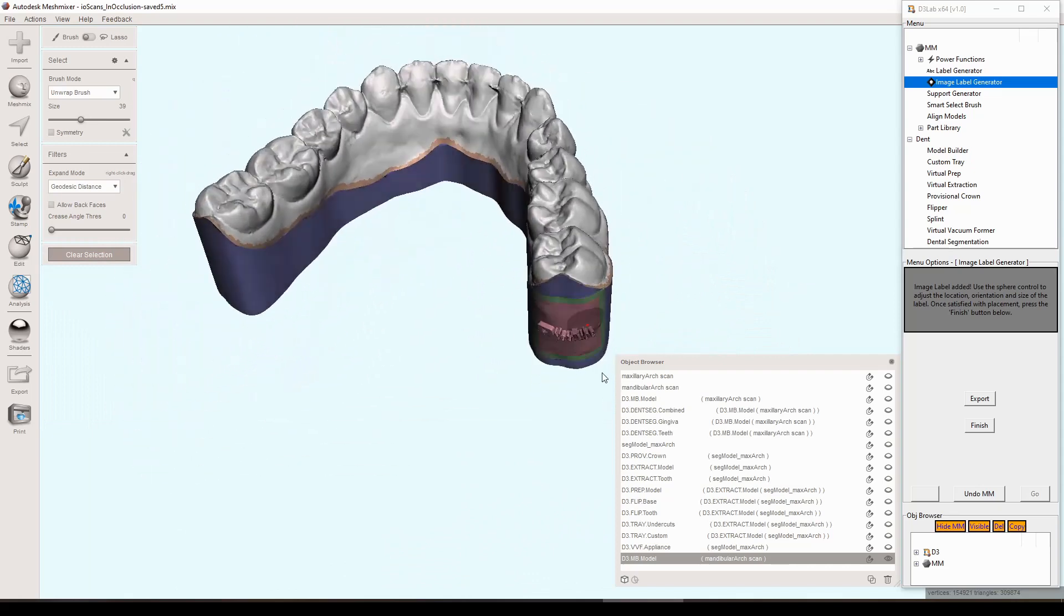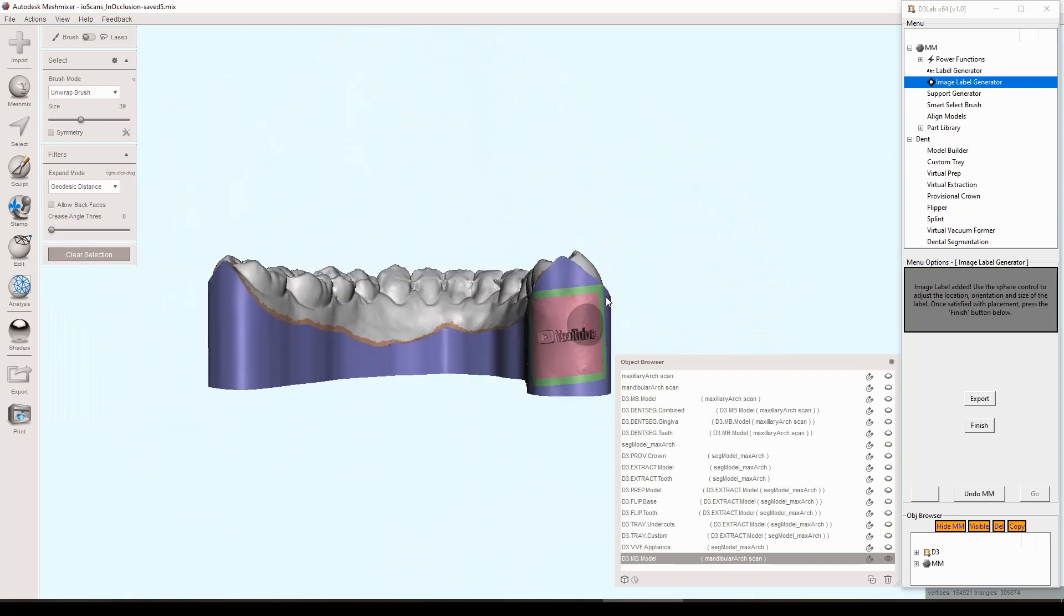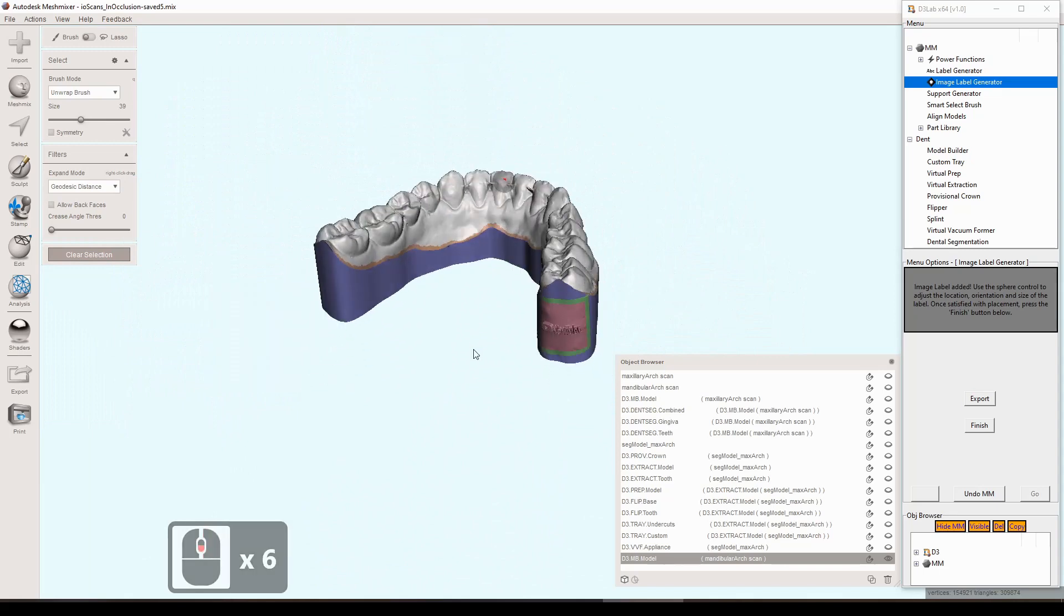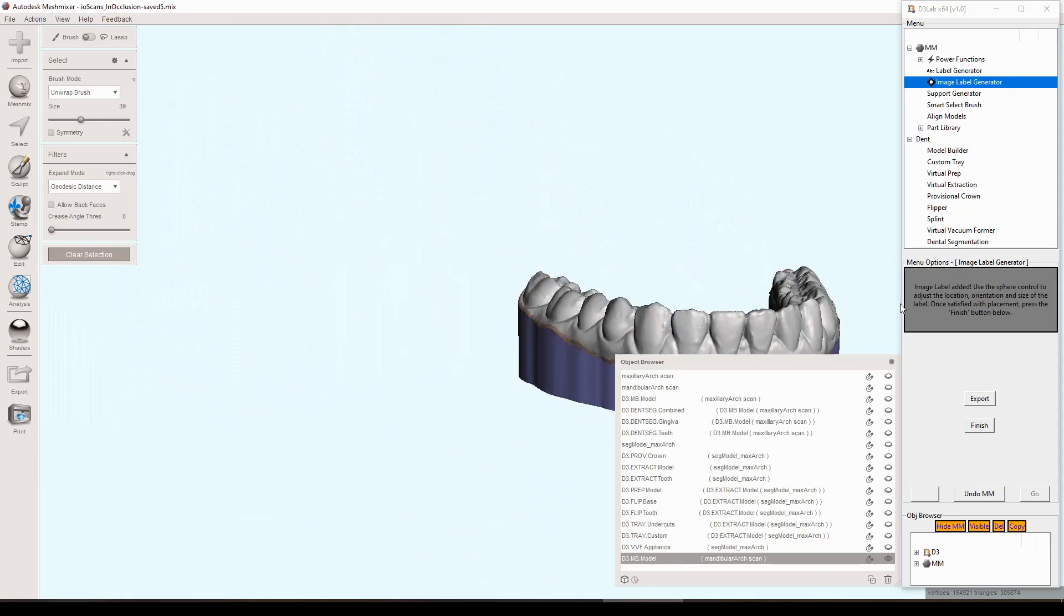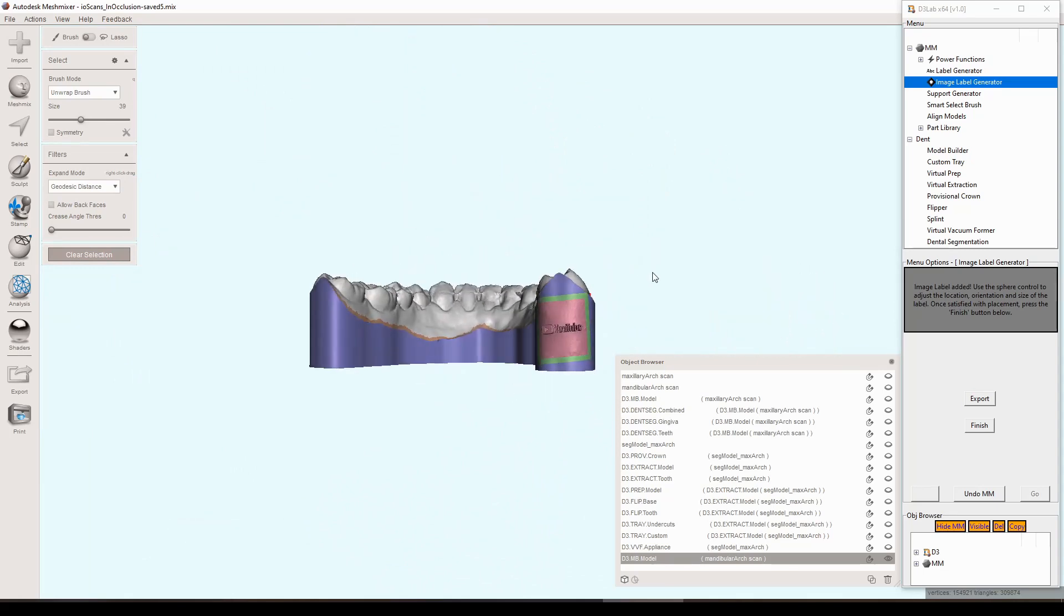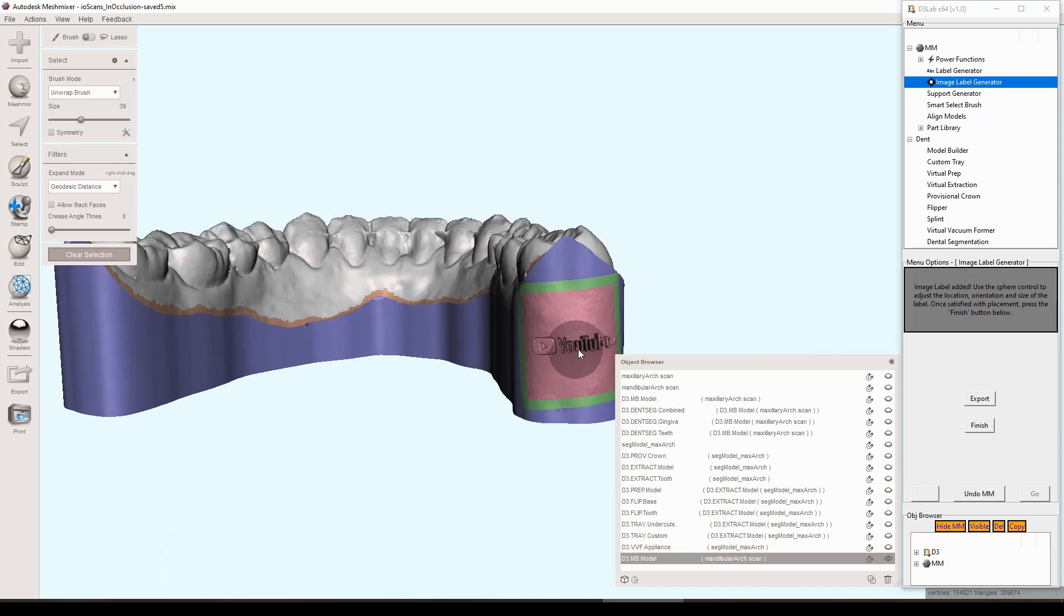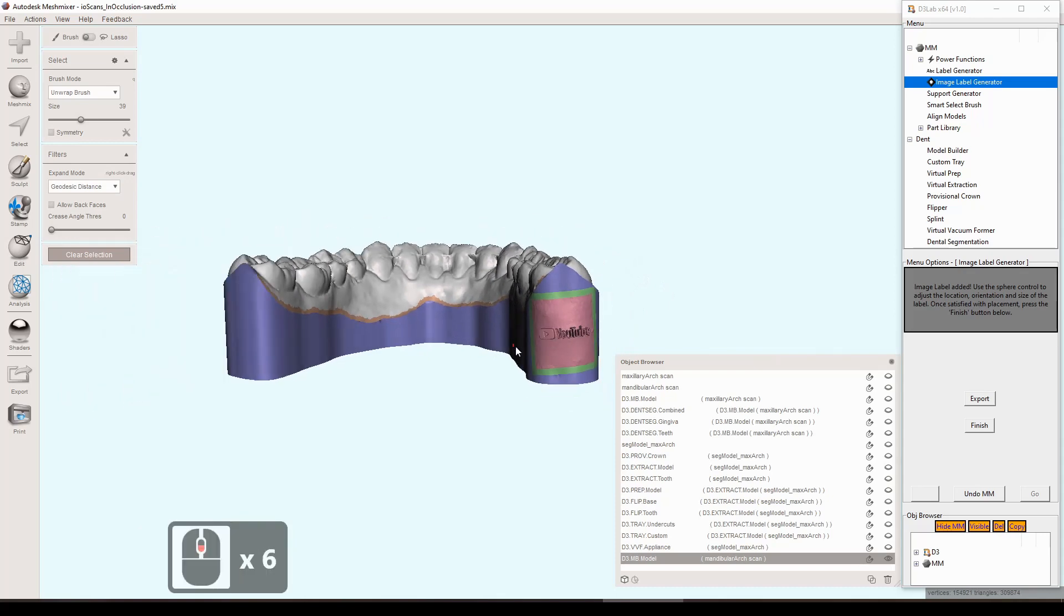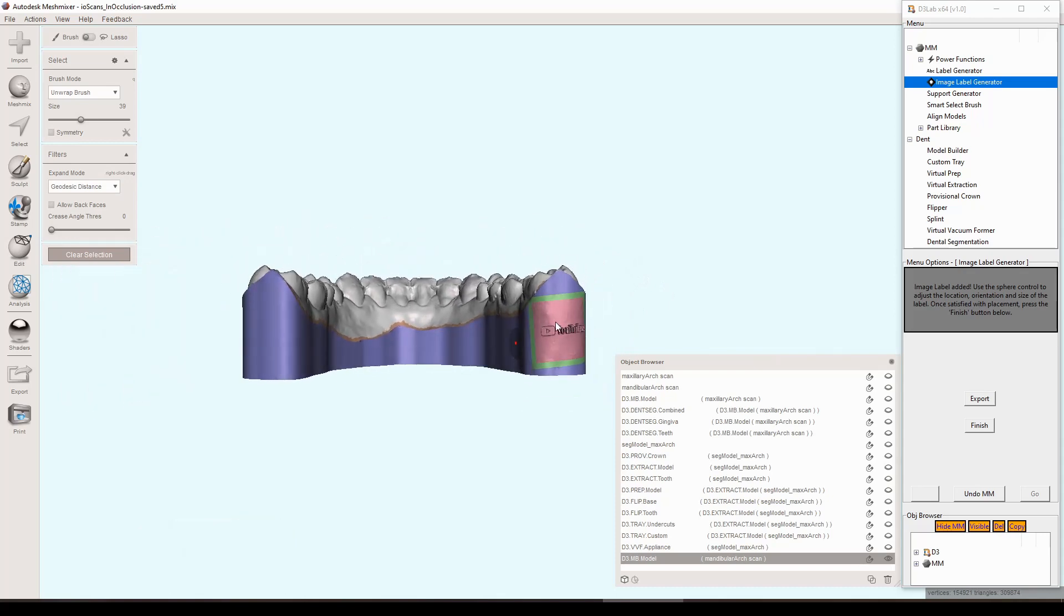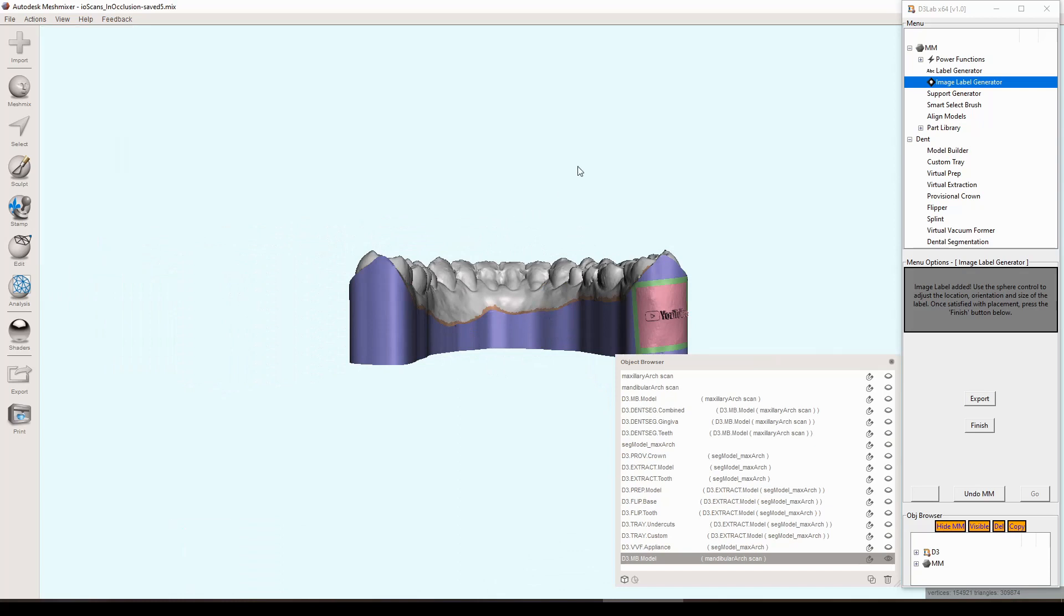That's looking pretty good so then we can move on to the text label generator which is virtually identical to the way it was in d3 mesh. We'll go through that one time just to make sure we can all see the workflow.